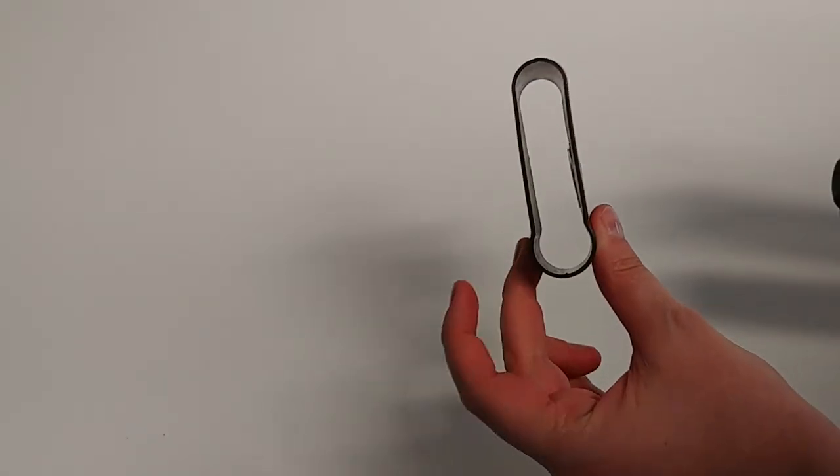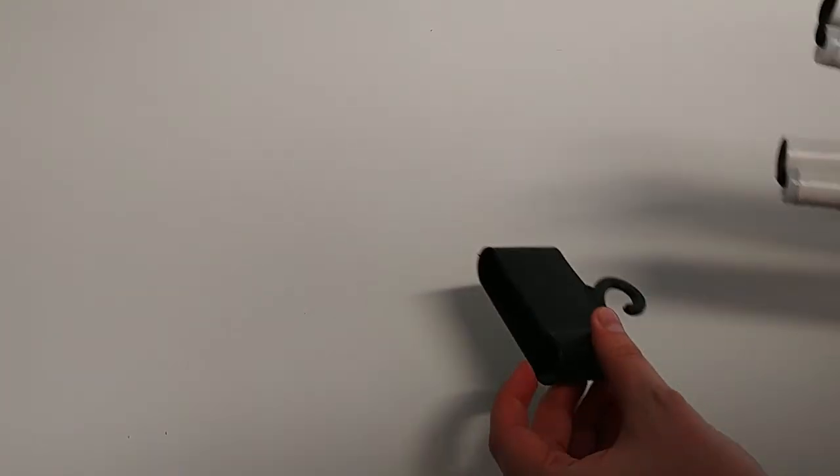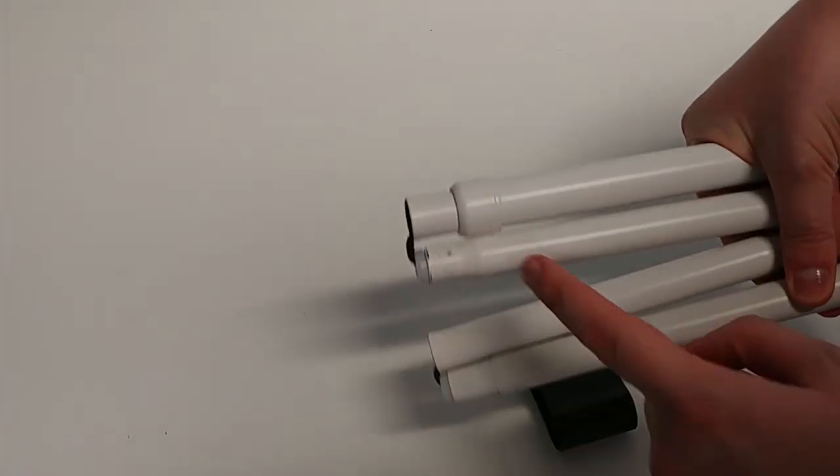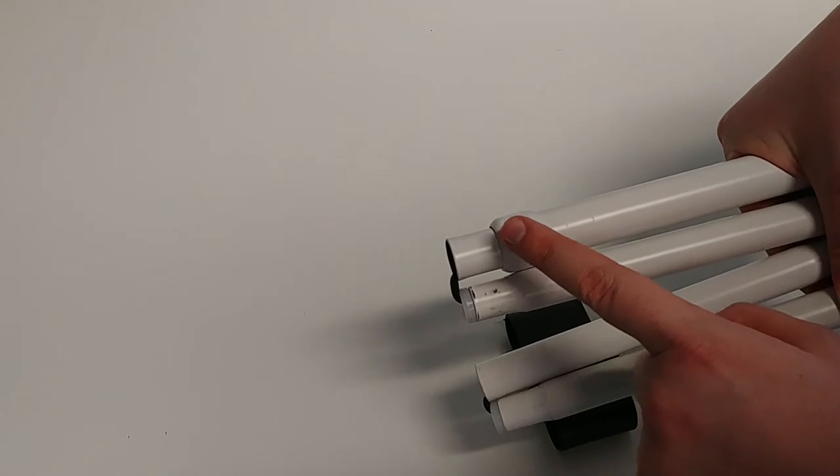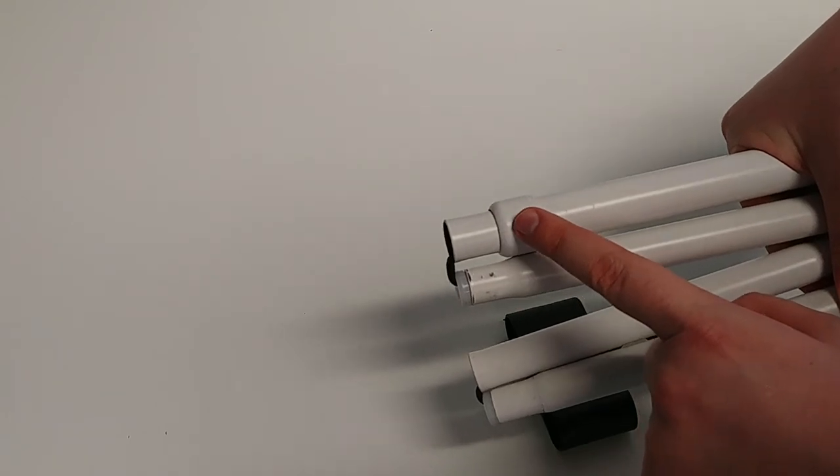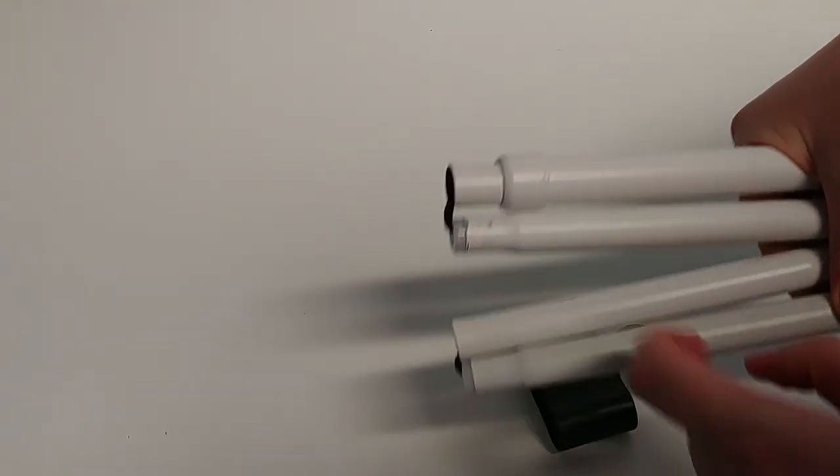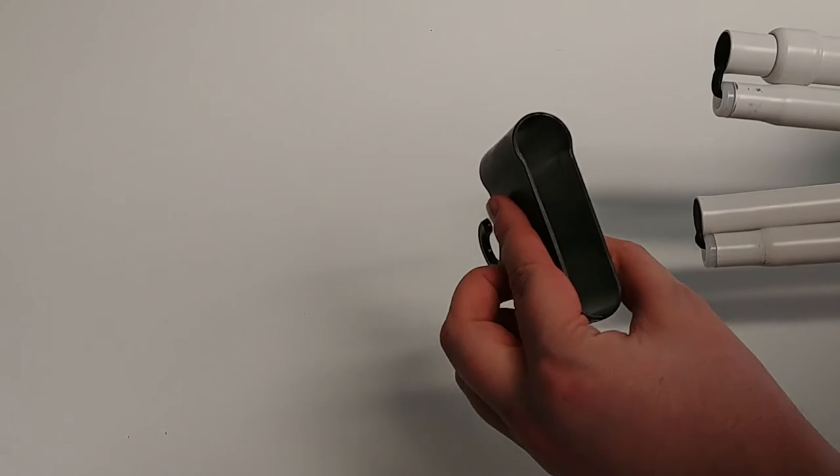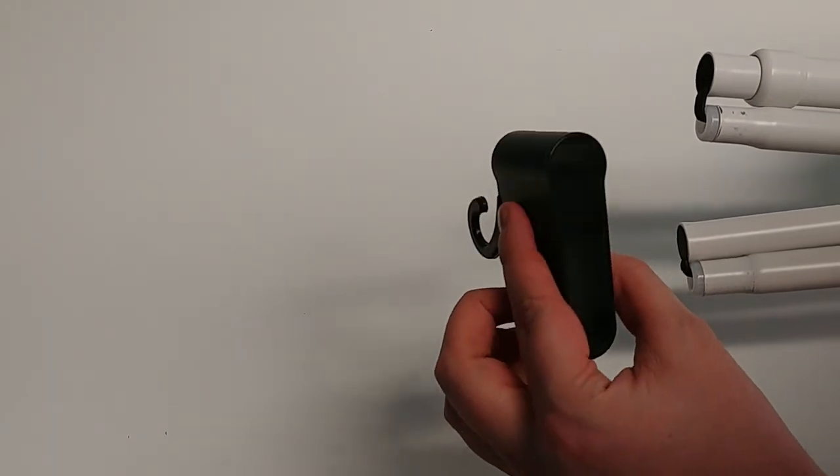You'll see that the strap does have one wider end than the other right here. You'll want that end to go over the wide end, it will go over this locking screw, so like so.